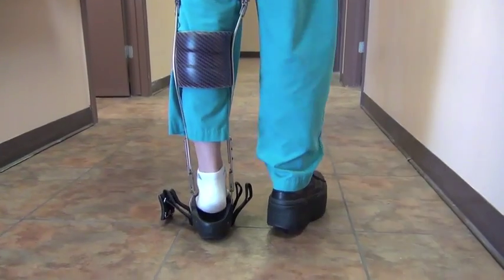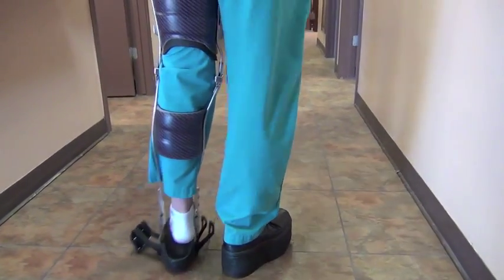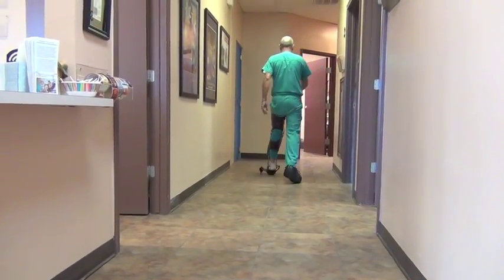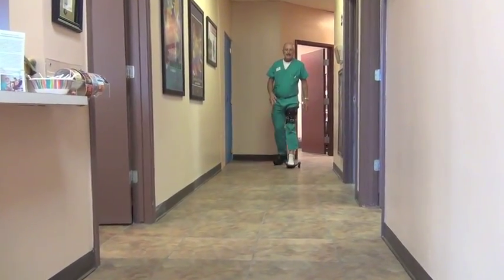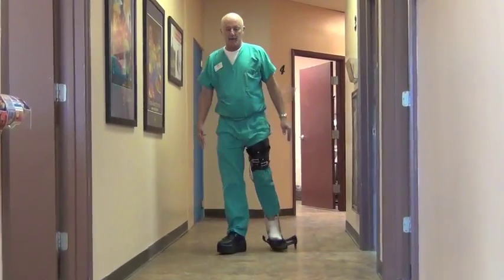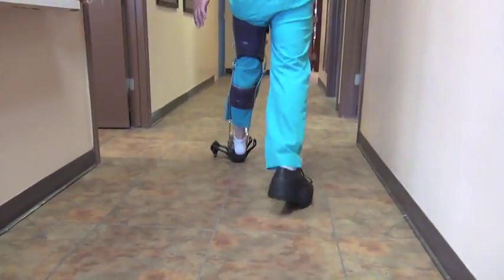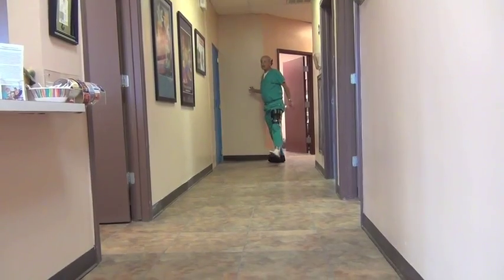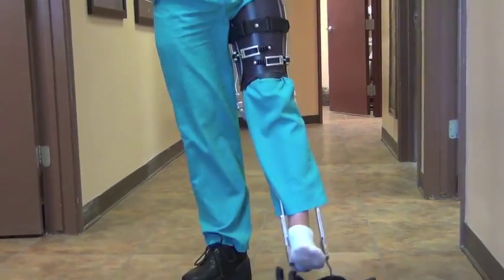I can go fast. If we make the lift on my right foot a little taller than the left side, then it makes it much easier to clear the floor. That's what I would recommend — put a lift on the other shoe and make it a quarter to three-eighths of an inch taller, so that swinging through, they wouldn't have to hip hike or do other compensatory things to get normal gait and to get the foot to clear the floor. My heel has not once touched.